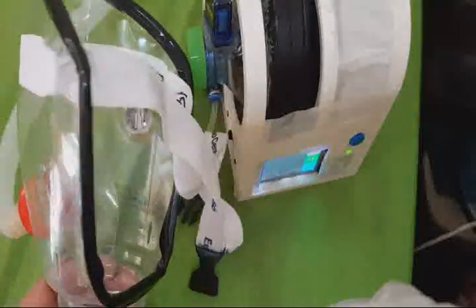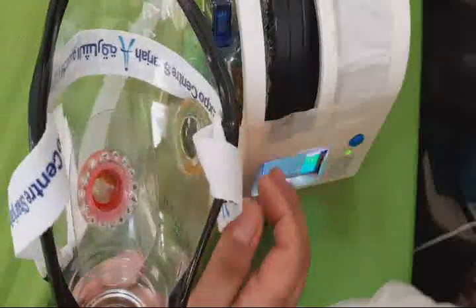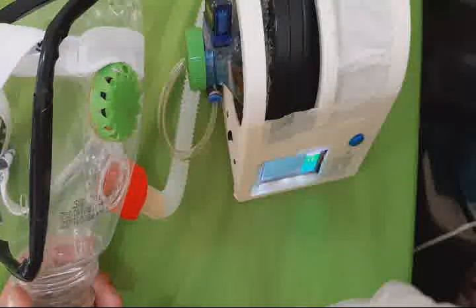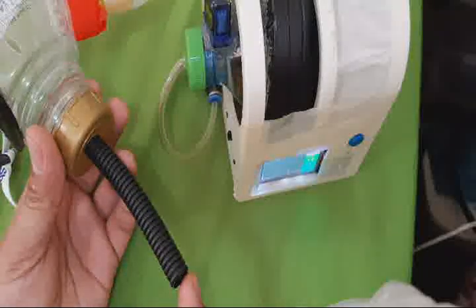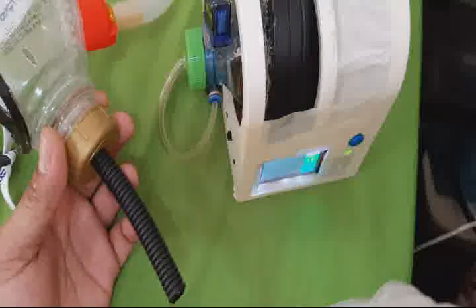I keep some extra area here, and this is the hookup belt, so you can hook it up on your head. There is a suction valve, and I especially designed this one to fit the mouth and face. This green one is the discharge valve, and this black one I made for the contaminated gas and material for the exhaust system.